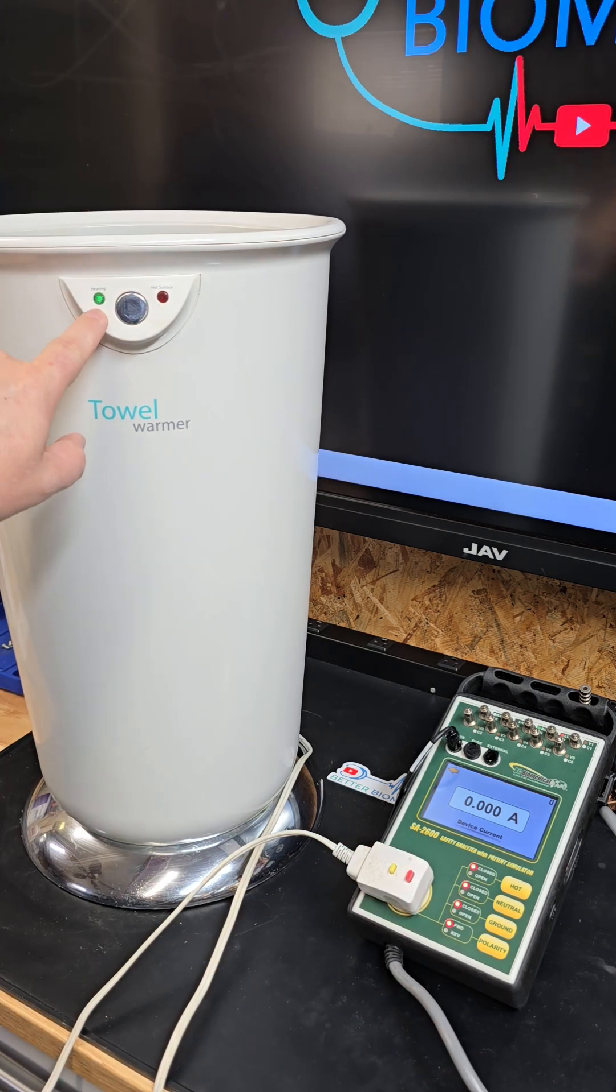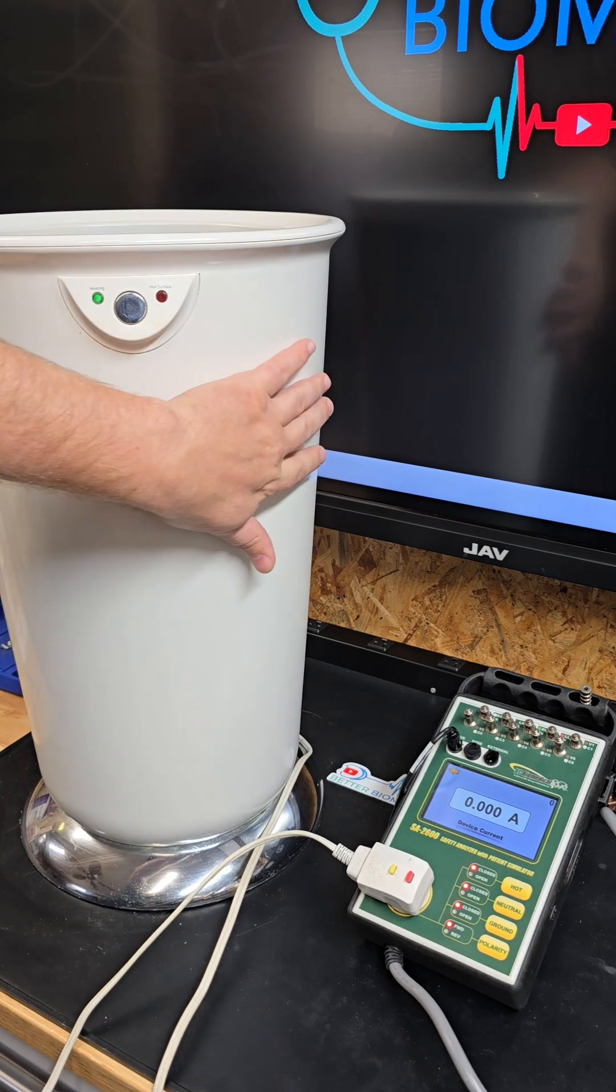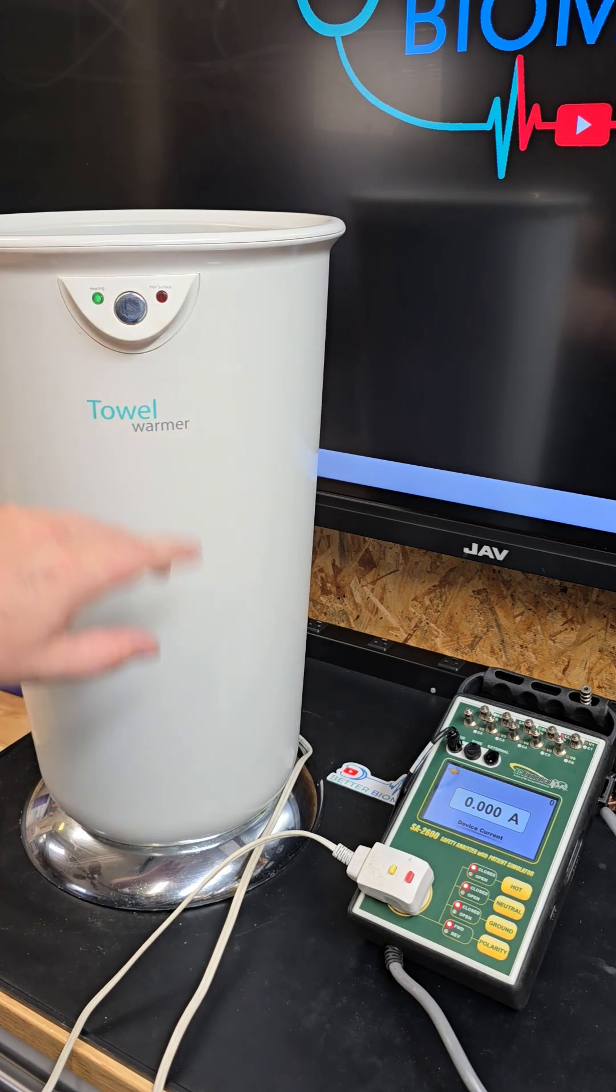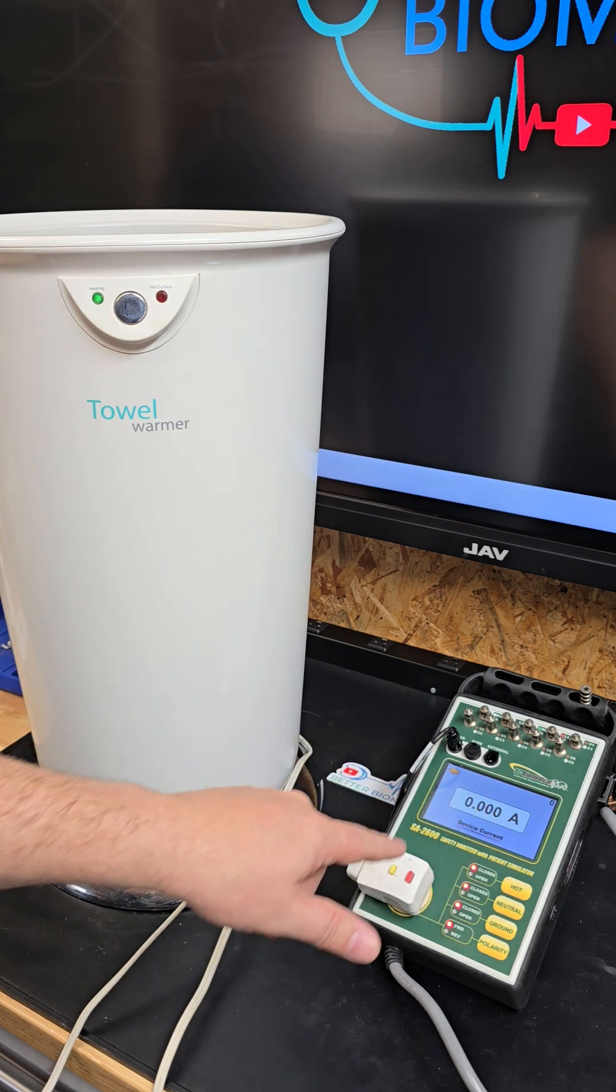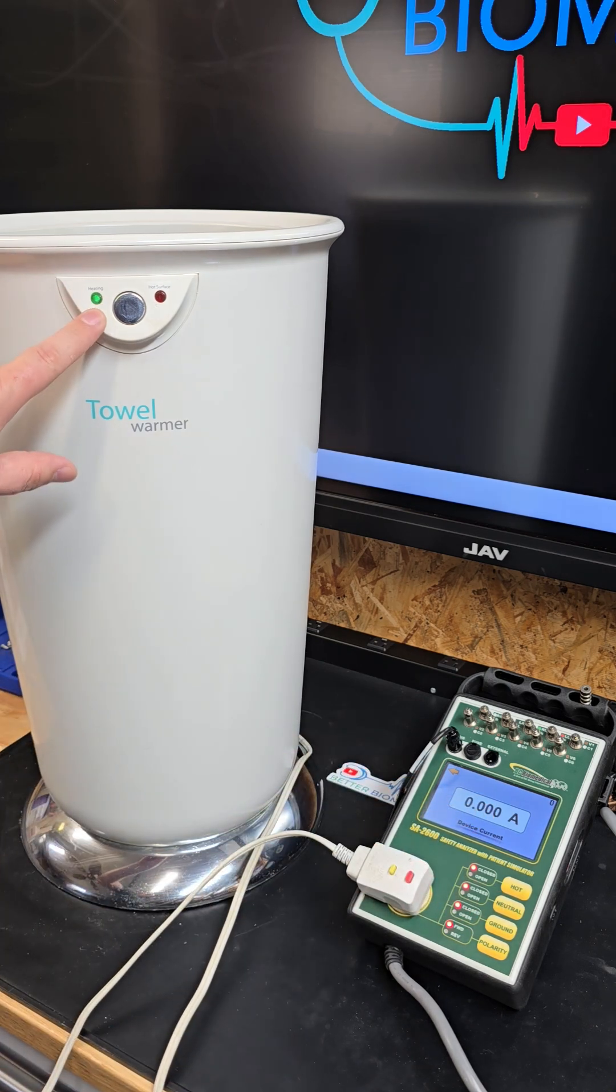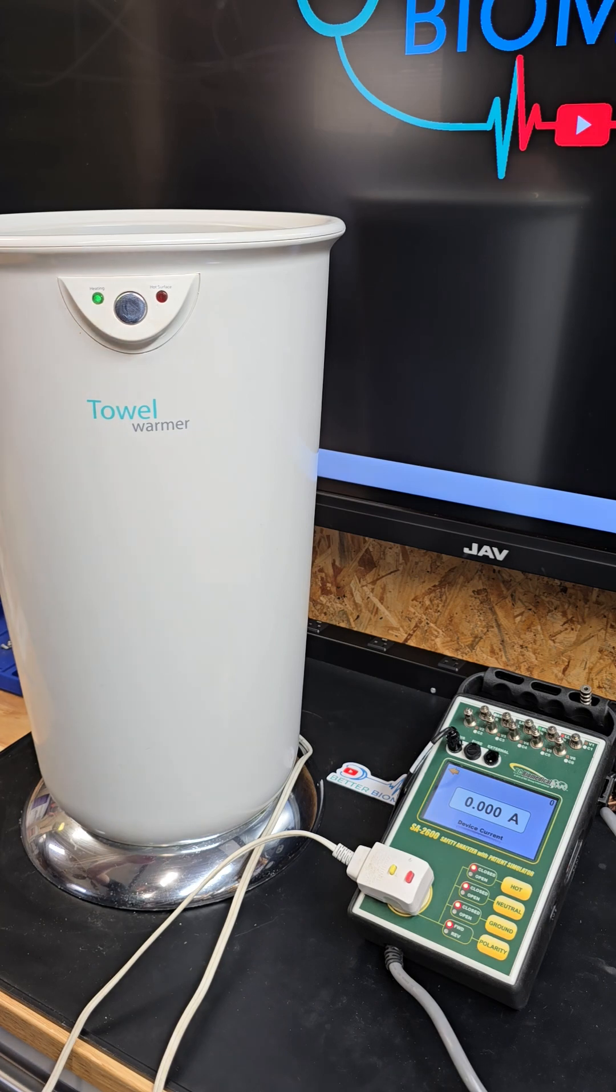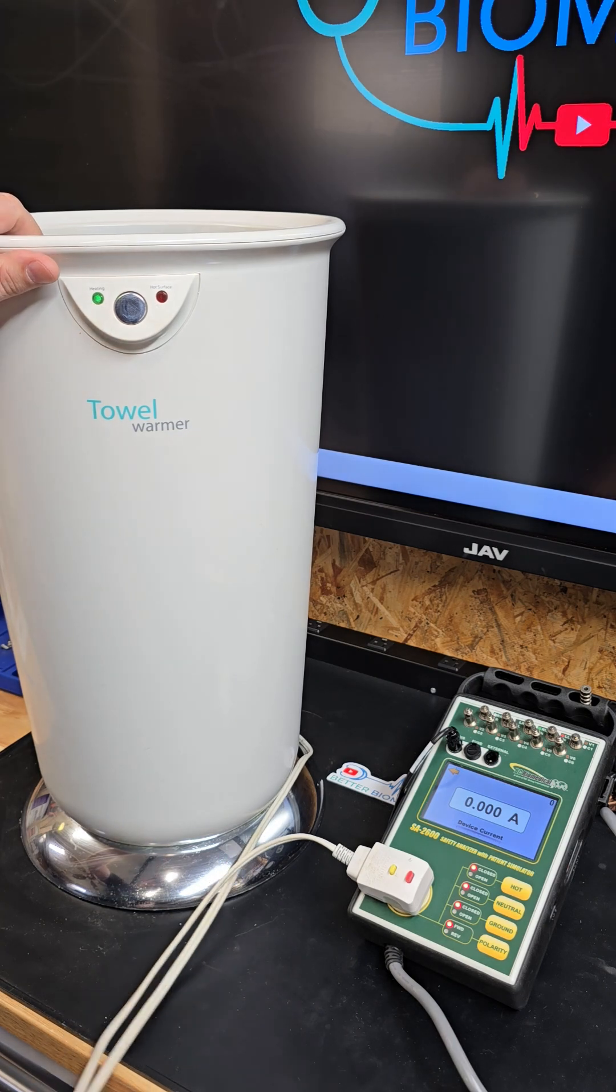However, I can show that it is lighting up, but that means it is not warming. This should be pulling quite a few amps and you're not getting anything. This little fluorescent device down here is not pulling hardly any current whatsoever.